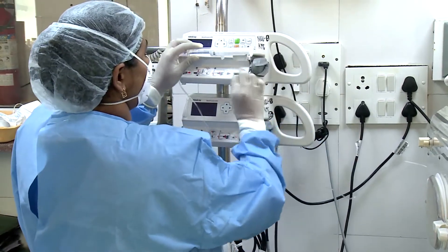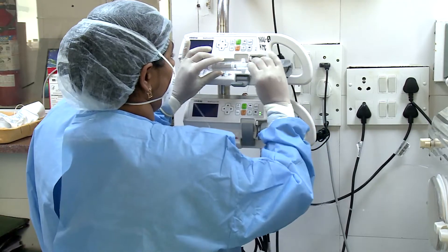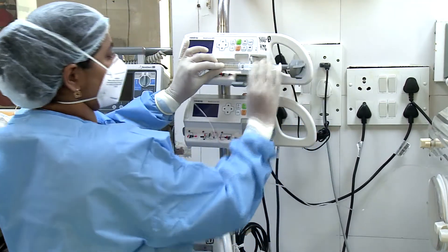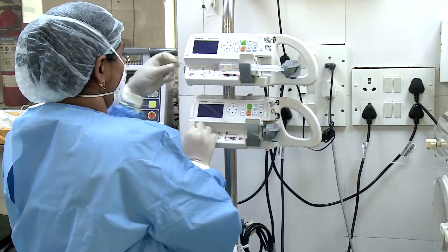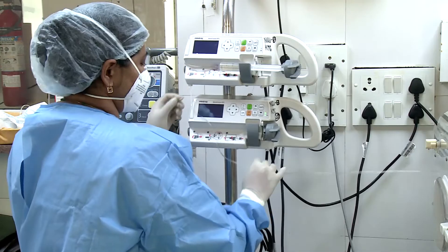Choose the appropriate size and type of syringe as required. Lift up the syringe holder and place the drug-filled syringe with pressure line, and attach the barrel and piston in their corresponding grooves. Ensure that the syringe is fixed well.